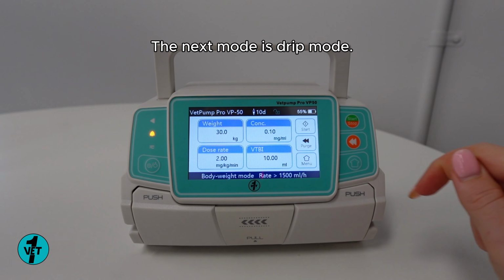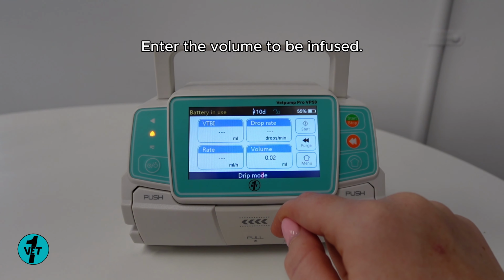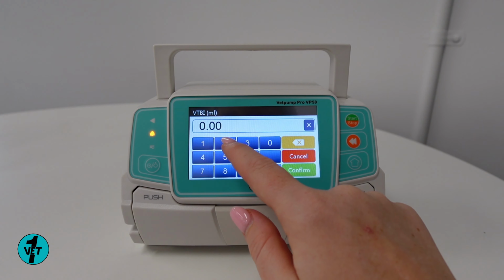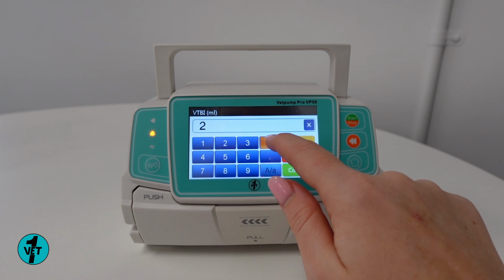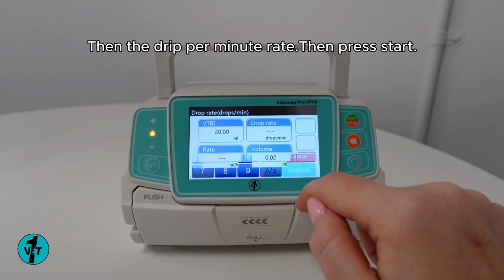The next mode is drip mode. Enter the volume to be infused. Then the drip per minute rate, then press start.